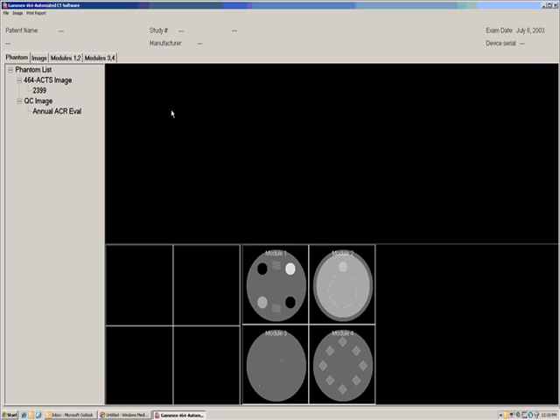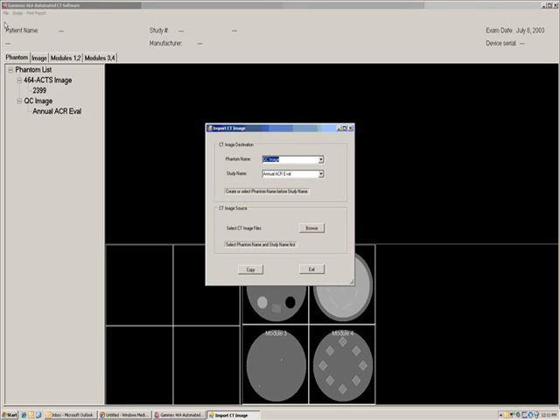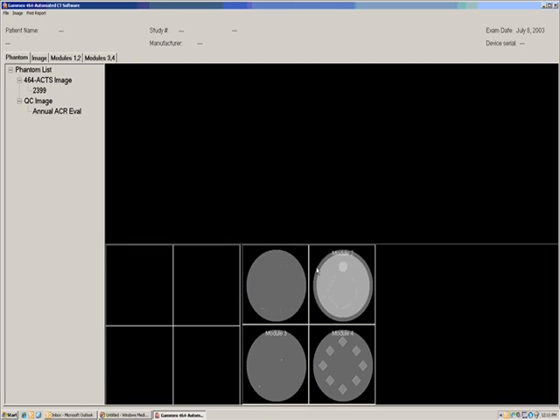After the phantom is aligned and scanned, the next step is to import the DICOM formatted images into the software. This is done by selecting Import CT Images on the pull-down menu found under the File button, then browsing to the file with the target images.